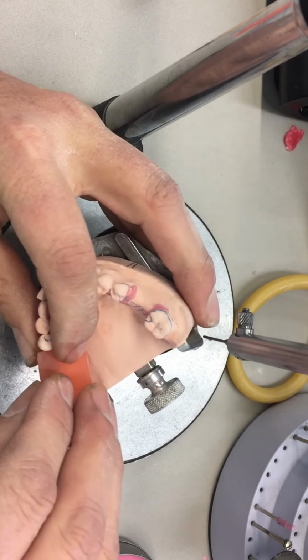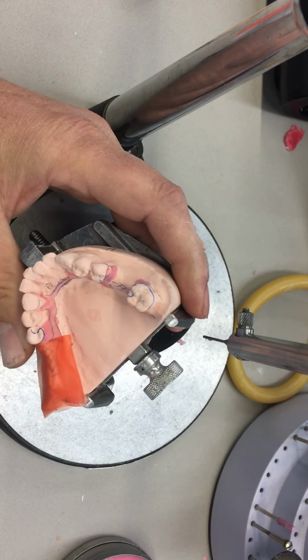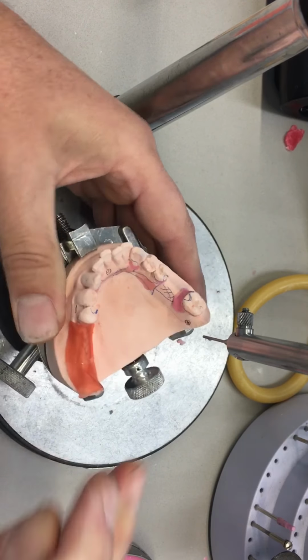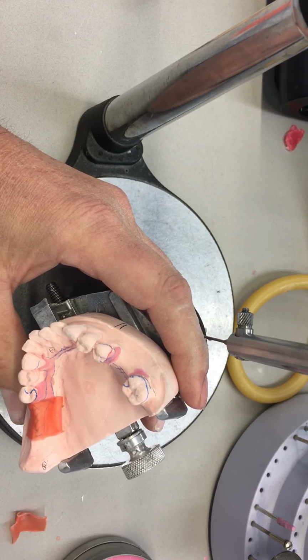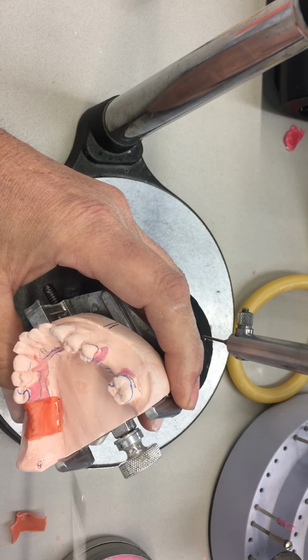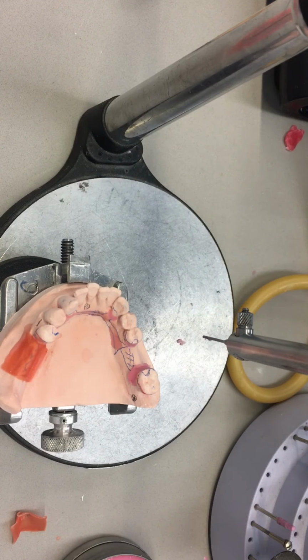So once again, this is review, but we need to really nail this down. I'm going to only put the blockout to the extension that I drew on my model that I required. I'll leave the mesial side sharp for my internal finishing line, and I'll leave the distal side sharp that will overhang my tissue stop that will touch the tissue, which will support the free end for processing and fitting purposes. I'll seal the blockout wax on the buccal and lingual, and then move over to the other side.